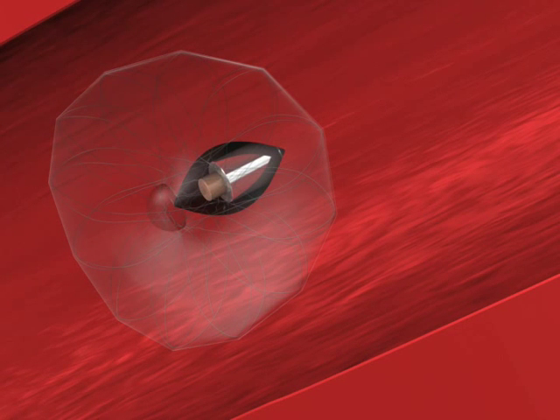During disc dwelling, the smooth muscle of the vessel relaxes, causing the large dilated arteriotomy to recoil back to its original 18-gauge needle stick diameter.